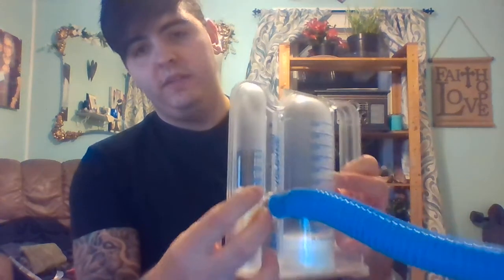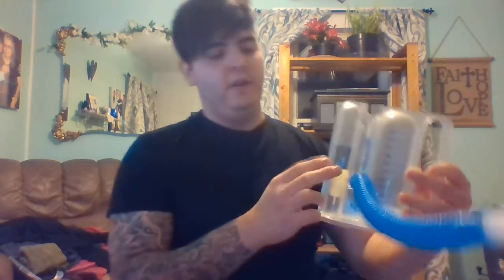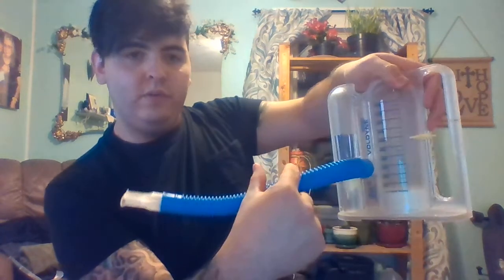Have them take a nice deep inhale, and that they don't do it too fast — nice and slow — and that the float stays within the best mark, at least reaching the top of the float. Right here we can mark where they're going to be, so about 2850. They can reach half of that the first few times; that's fine, it's something to get used to.